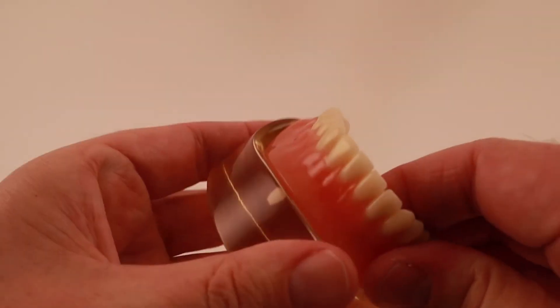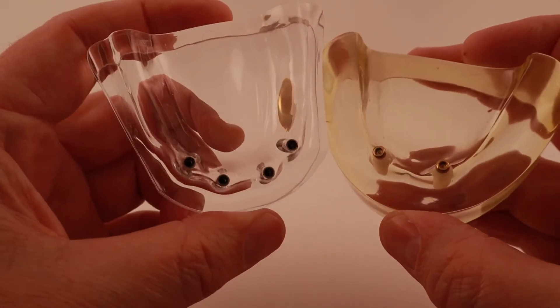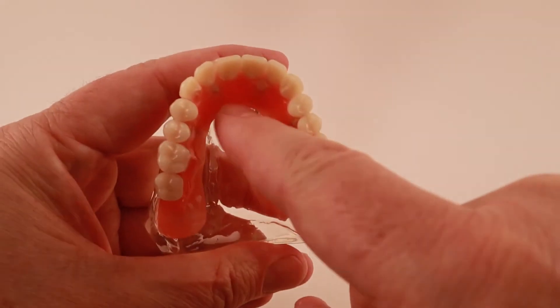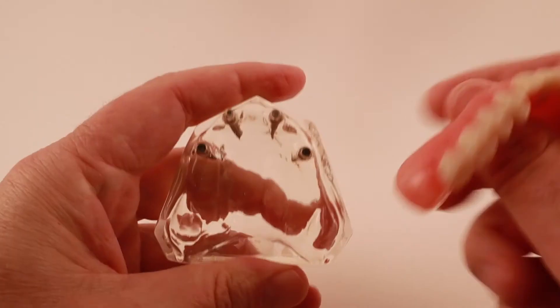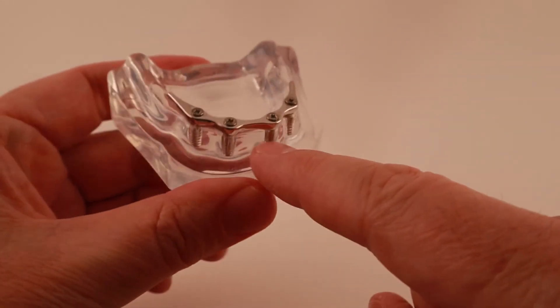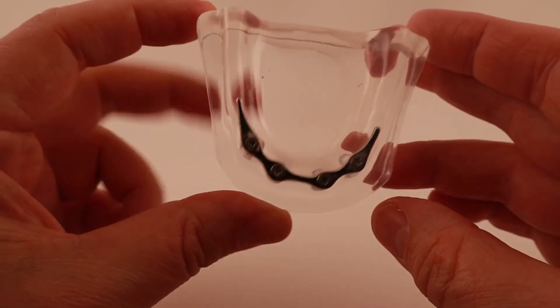You don't have to worry about getting a cavity, but you have to keep the area under the bar and around the implants clean to avoid gum disease, which could lead to implant failure. Category 3, maintenance and repair. Both types of overdentures will have similar issues over time. The main issue is that the plastic snaps that hold the overdentures will wear out and loosen up over time — it is usually a simple job to replace them. The implant retained overdenture is more likely to need more frequent replacement of the snaps since it can move a tiny bit more than the implant supported overdenture.